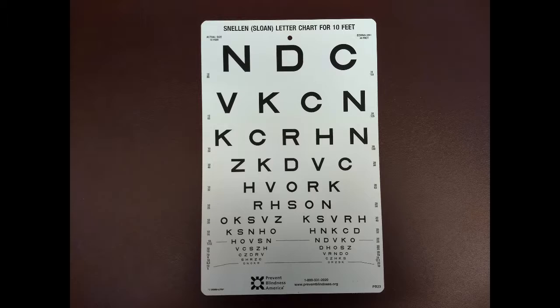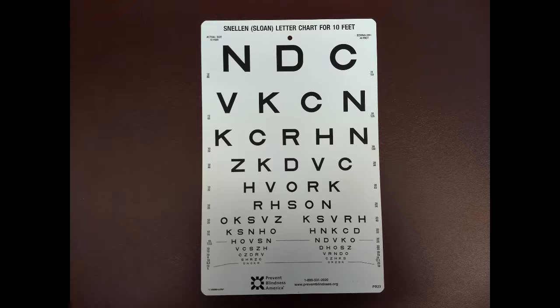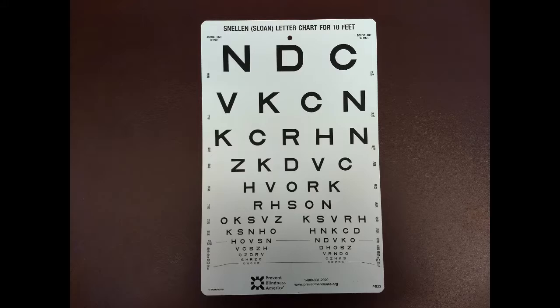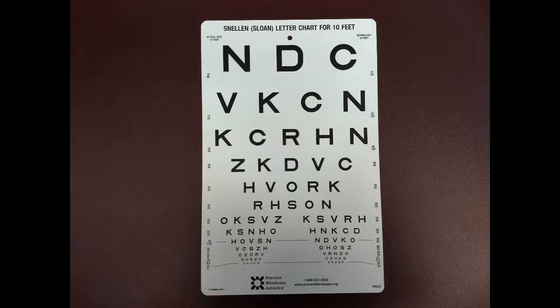A visual acuity with a denominator above 20 over 40 typically indicates a referral to an optometrist for further evaluation. A visual acuity score of 20 over 200 indicates that the patient is legally blind.